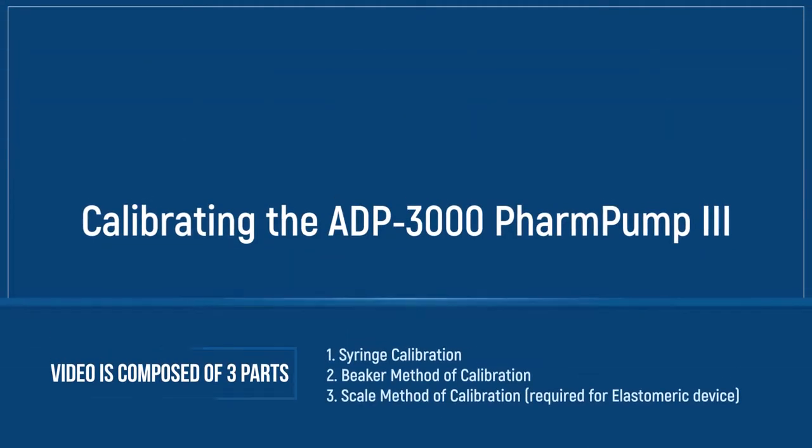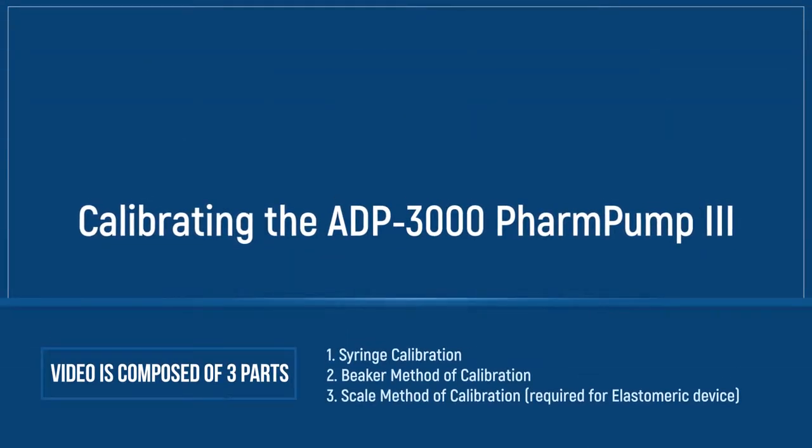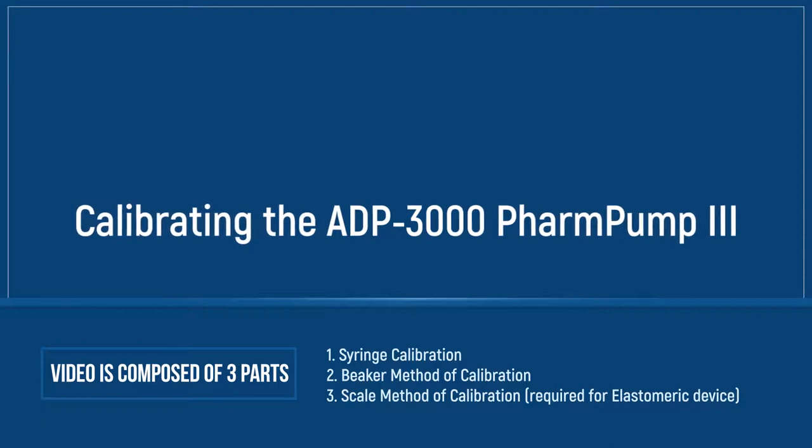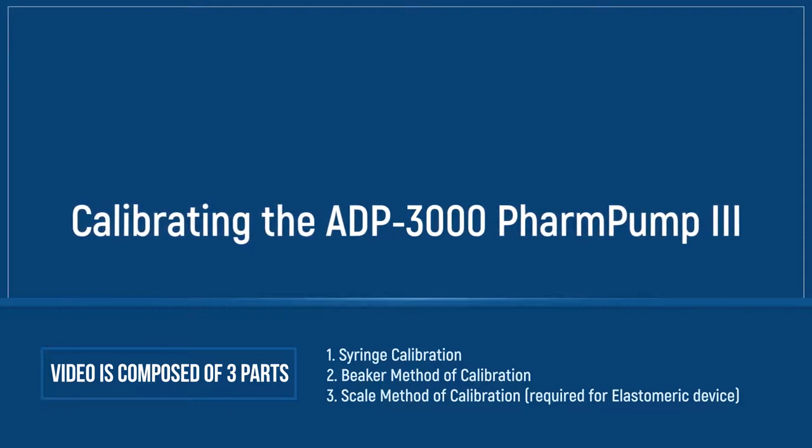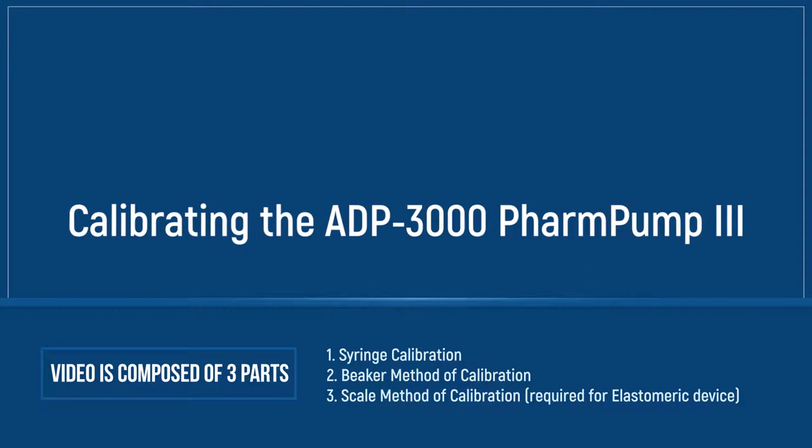Calibrating the ADP-3000 PharmPump 3. This video is composed of three parts: syringe calibration, beaker method of calibration, and scale method of calibration.